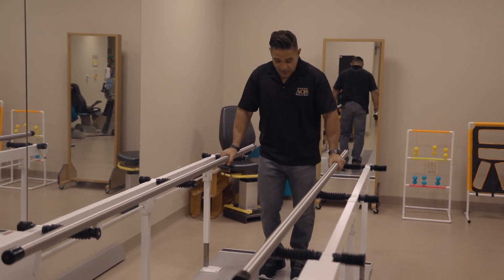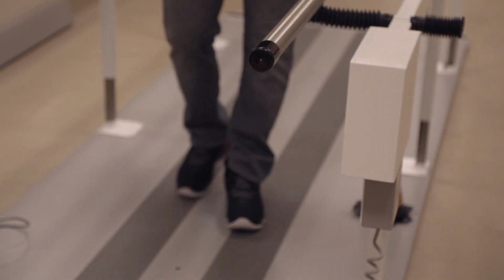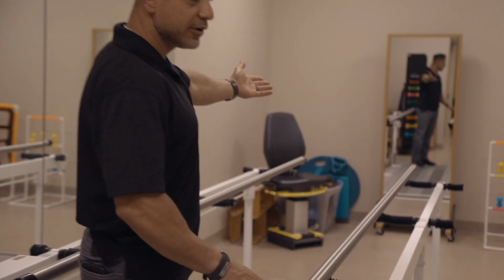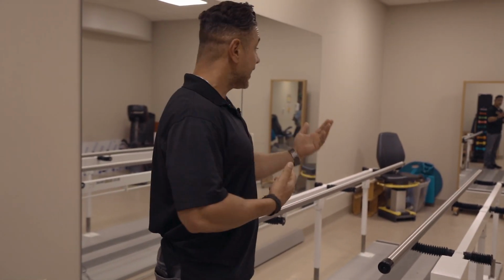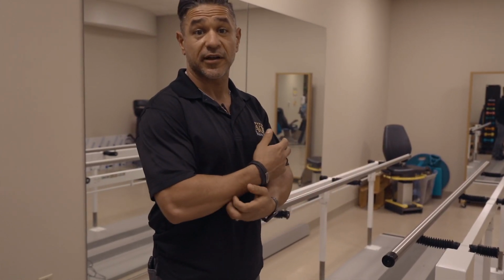It's basically so they can walk with a therapist in front or behind them, and they can move their legs and do some ambulatory exercises while they're in the parallel bars. It's common for a stroke patient, if you look down toward the end of the parallel bars, there's a mirror, and when patients keep their head up and they ambulate and they use this particular piece of equipment and they see themselves, that biofeedback from seeing themselves in the mirror often helps to accelerate the effects of the therapy.